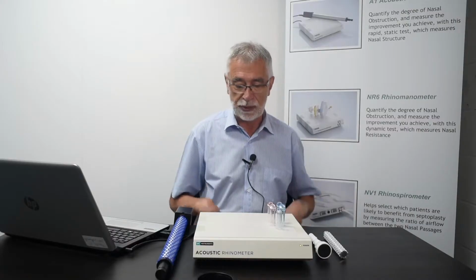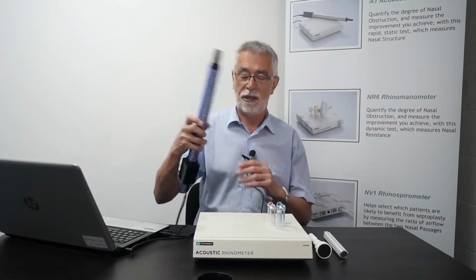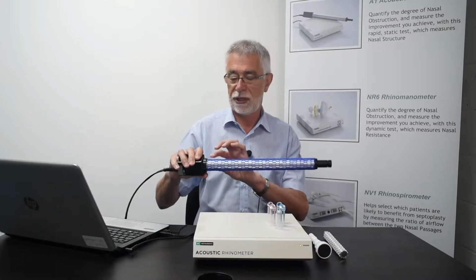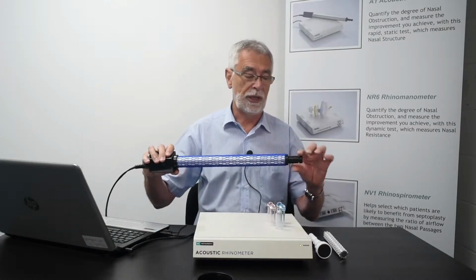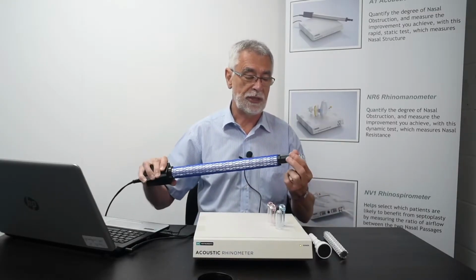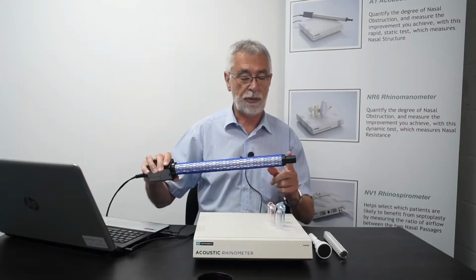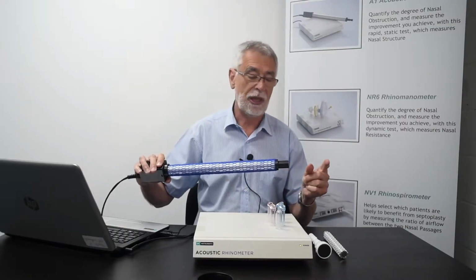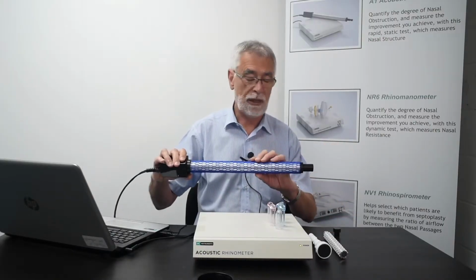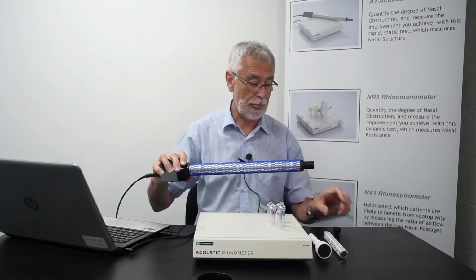The acoustic Rhinometer itself comprises the transducer box, which I have in front of me here, and a sound tube. The system operates by generating a click sound at the black box here, which travels up an internal tube, past the microphone, and exits the sound tube at the end here through a nose piece, and that is normally applied to the nose when we're making measurements. As the sound travels up the tube and past the microphone and then into the nose, anywhere where there's a change in cross-sectional area produces a reflection back down the sound tube again, which we process in order to give a plot of cross-sectional area as a function of distance.